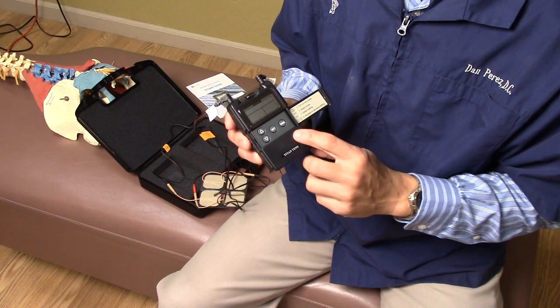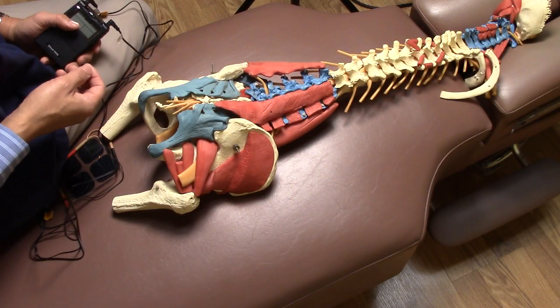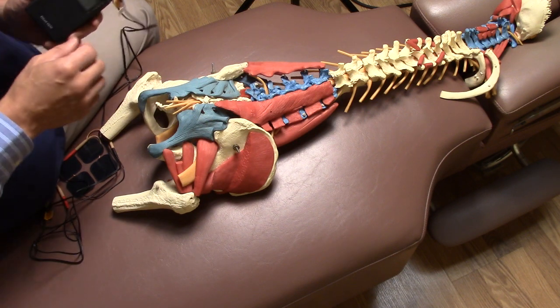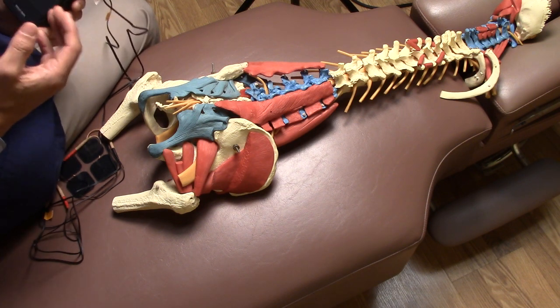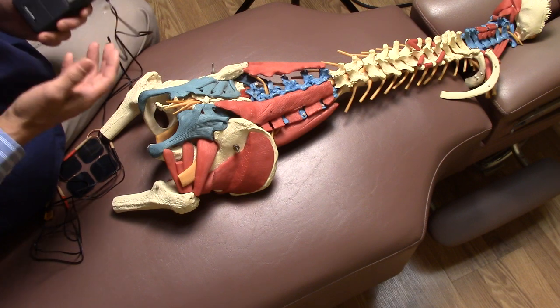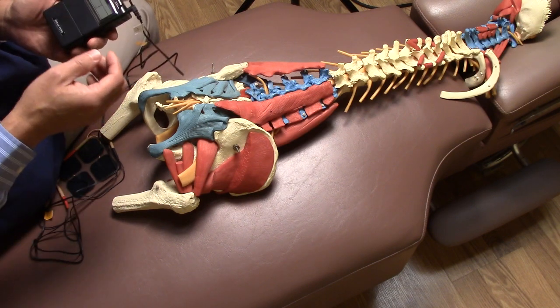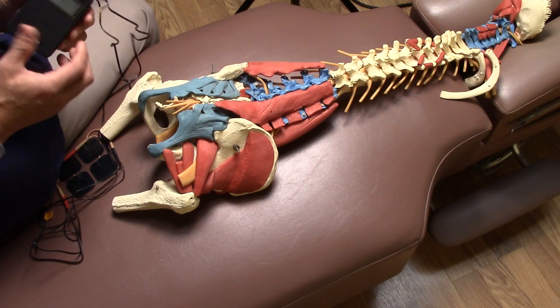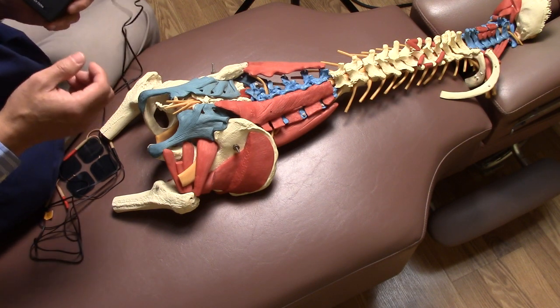The TENS unit also comes with pre-selected therapy modes that you can select by pressing a button. It's actually not an exact science — you're going to have to experiment with the placement, pulse width, and pulse frequency settings to see which combination gives you the best results. You can do this testing and get the treatment at the same time without any adverse outcome. Feel free to experiment with the settings; there really is no wrong setting.